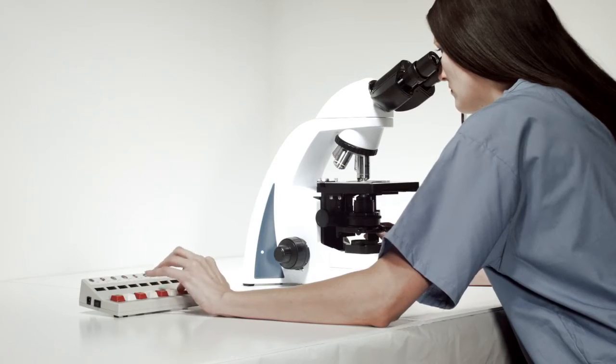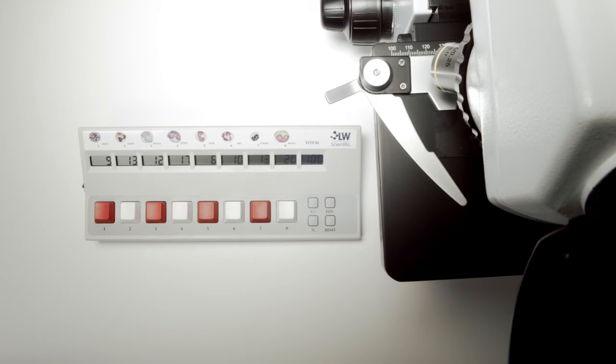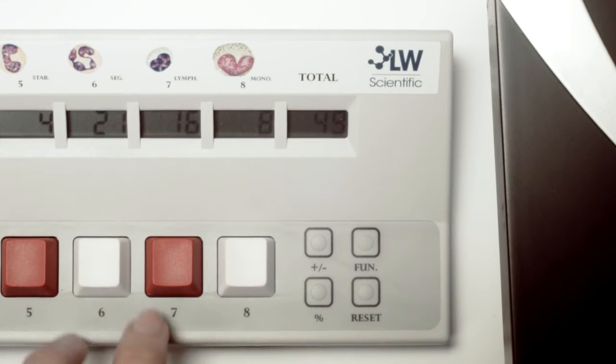Tracking totals is nearly effortless. At every cell multiple of 100, this counter will beep, helping precise counts be attained. Press the percent button to quickly find sample population percentages.